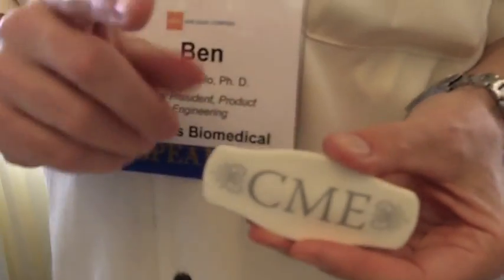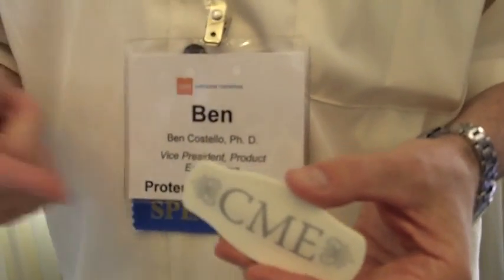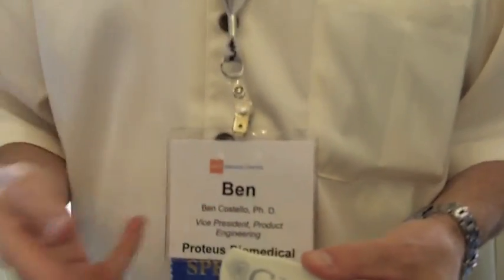At the same time, this health companion is measuring other physiologic measures, such as heart rate, respiration, activity, sleep, and temperature. It encrypts that data and uploads it to the internet via the patient's cell phone.